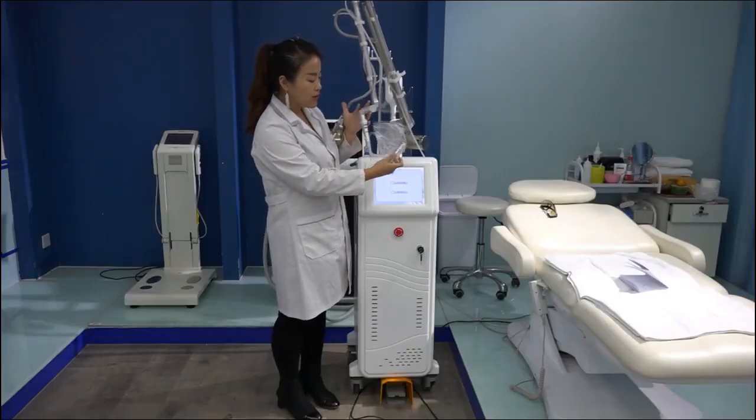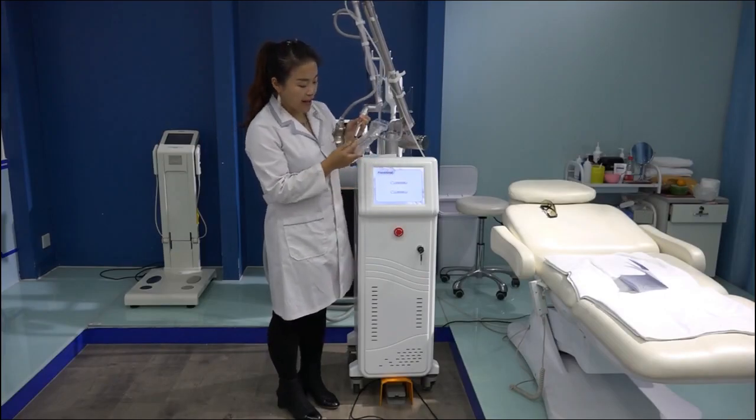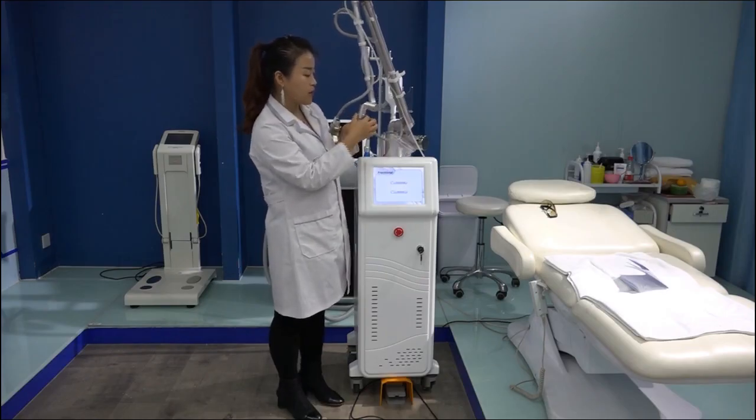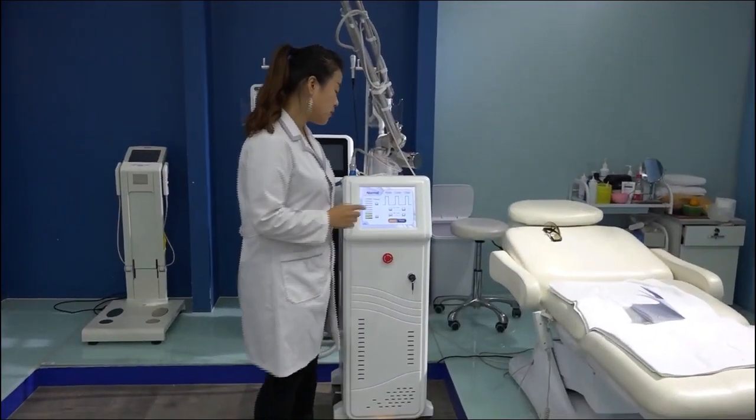Okay, now we also have the cutting head. We will send you 2 pieces. These are different sizes of the laser. They are cutting heads. The cutting head is here. And you change the head screw here, and then change this, it is okay. Okay, now it's cutting mode.